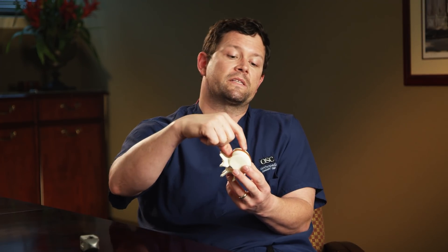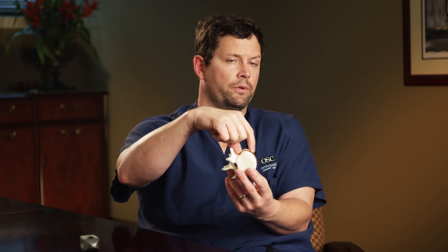When I directly see the disc, we're able to confirm with radiographs and x-rays at all times and ensure that we're in the proper position before the disc can be essentially completely removed and then replaced. This is an example of one type of cage or device, just showing what these things look like on a larger scale.